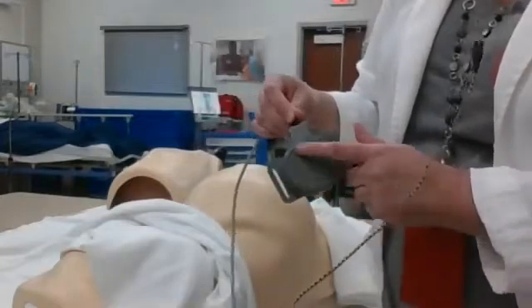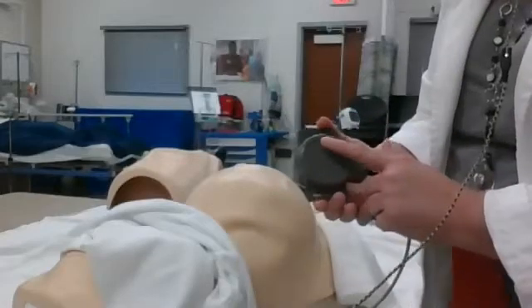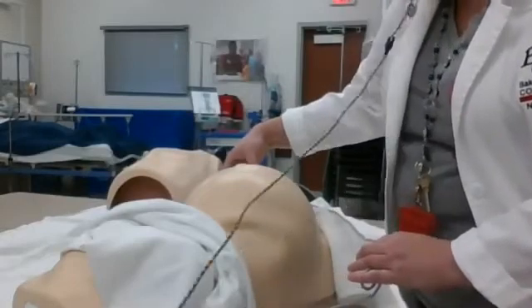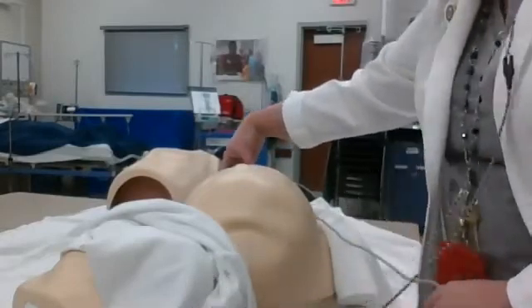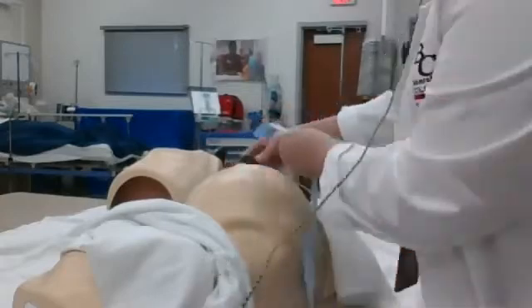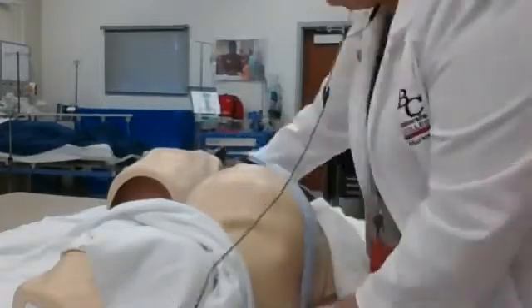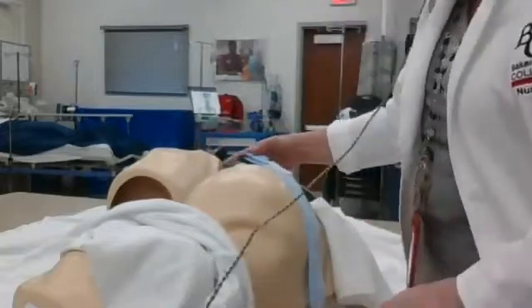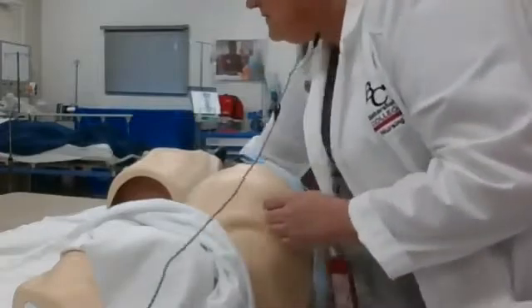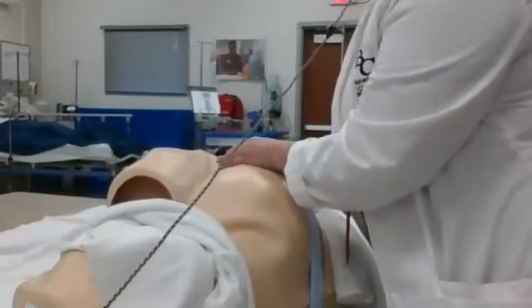You have two monitors here. This one is the ultrasound — you'll be putting ultrasound gel here, and you can see it has a smooth surface. Once you place that on the mom you will hear the fetal heart rate, and I'll be playing you some videos of what that actually sounds like. You might see a couple of different securing devices. We have straps that will hold this monitor on and come around the other side and strap down. Depending on the facility, these straps may look different but they serve the same purpose.